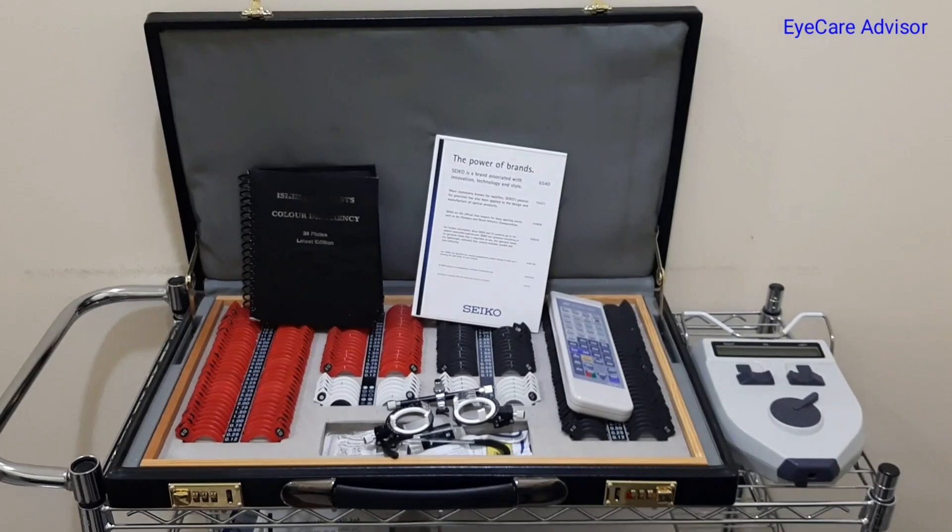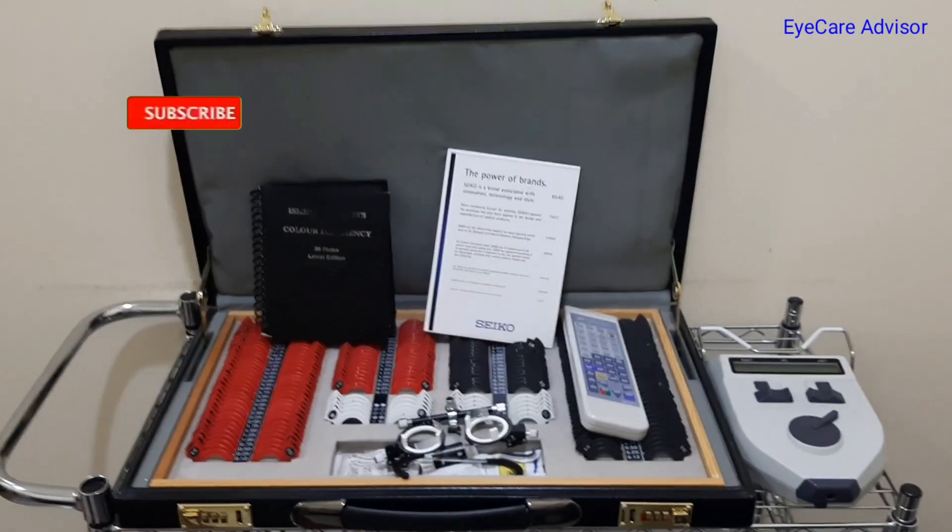Today in this video I will show you my clinic — a tour of my clinic, what instruments I have and what other things are there in detail. So without wasting any time, please come and check my clinic. This is the trial box we have in my clinic.